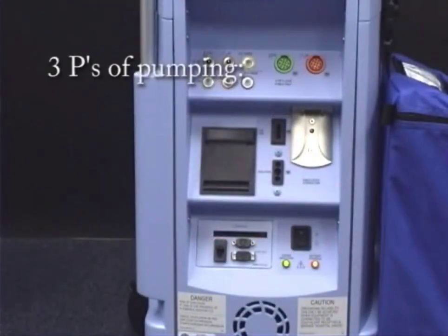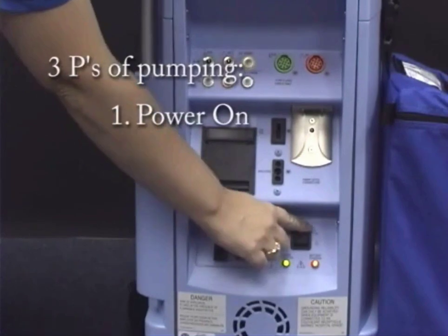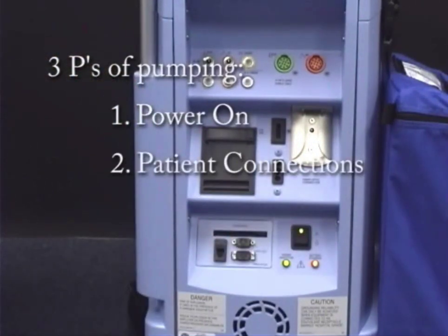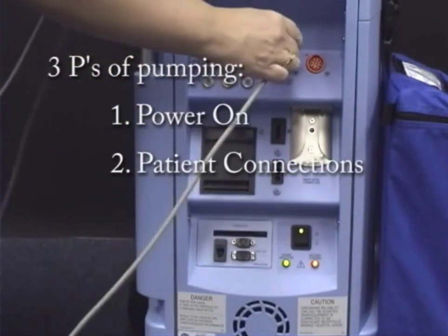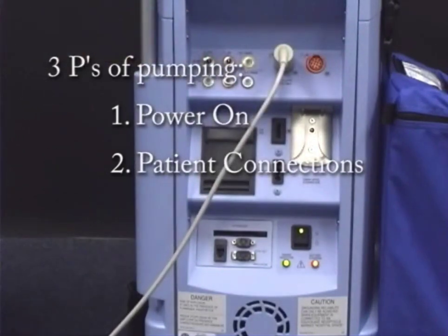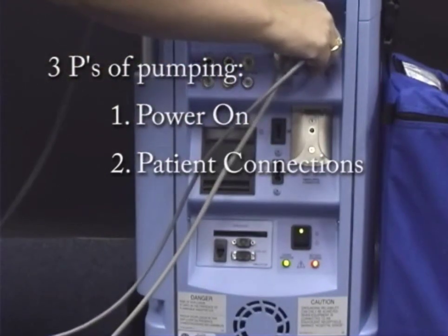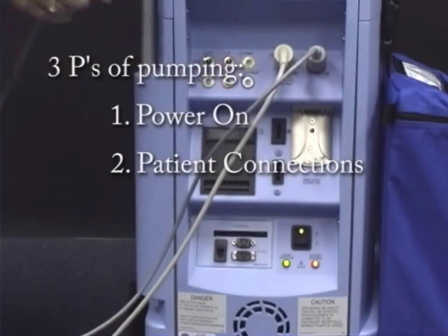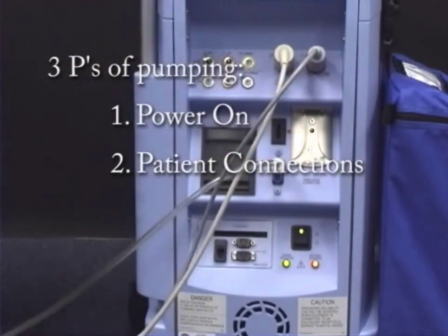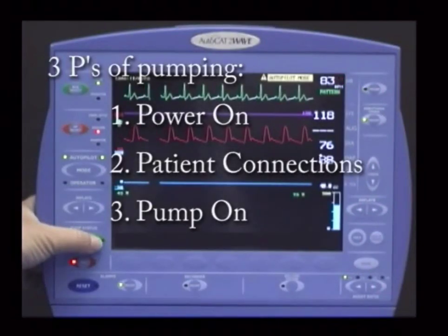There are three steps to initiate pumping. First, turn the power on. Second, connect the patient to the pump, including ECG, arterial pressure, and balloon. Third, press pump on.